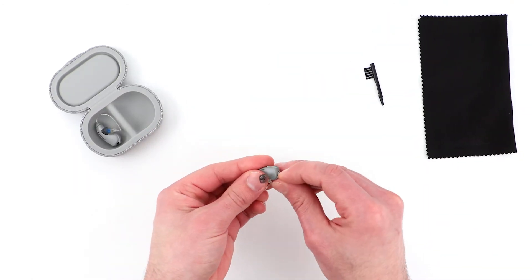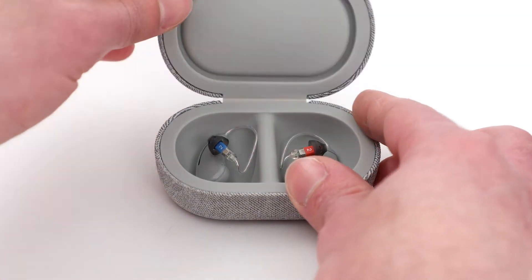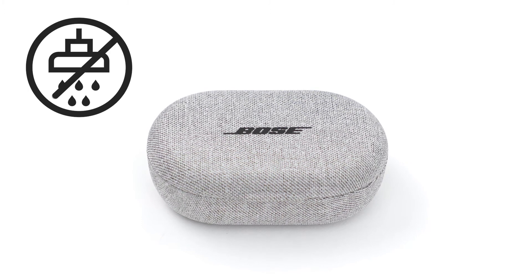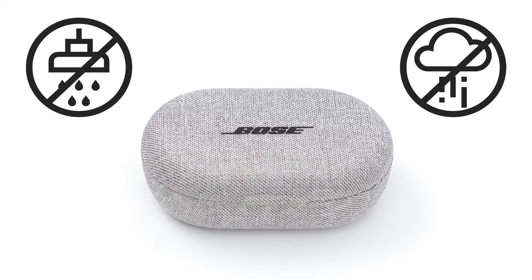When you're finished cleaning the hearing aids, put them in the carrying case and close the lid. Also, it's important to keep the hearing aids dry. Never wear the hearing aids in a shower, bath, or pool, and protect the hearing aids from prolonged exposure to rain and moisture.